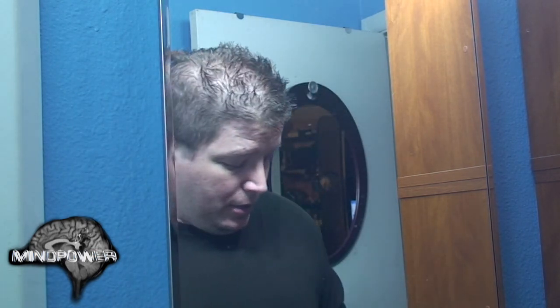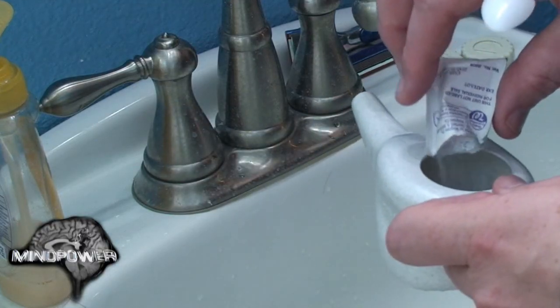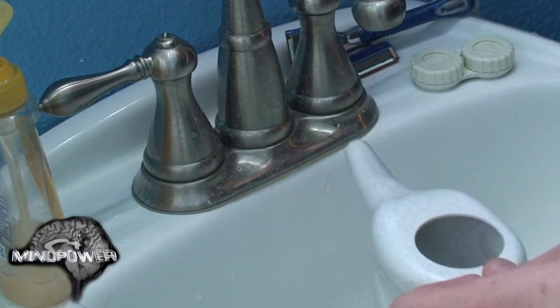Now here we have packages that come with it. I got these at my local pharmacy store. These are over the counter — this is not prescription, although doctors do prescribe it many times. I'm going to dump one of these packets. It basically turns tap water into saline for your sinuses. And then you want to turn your water on at a very lukewarm temperature.